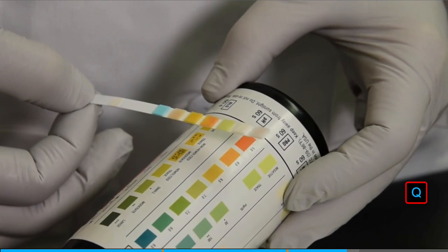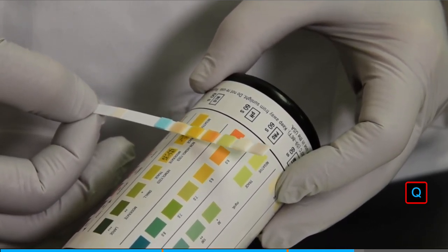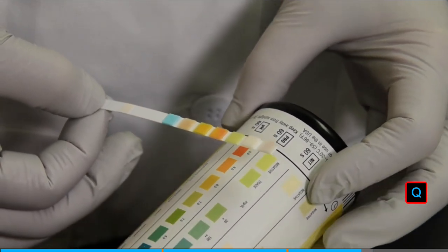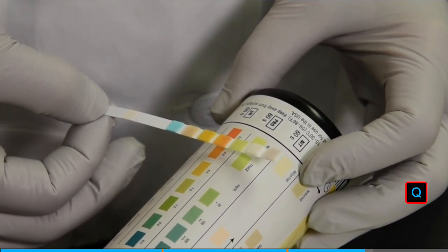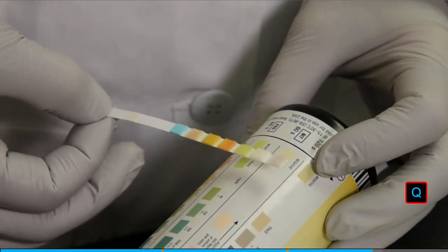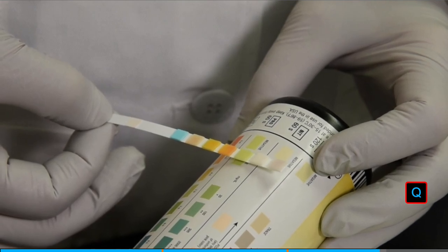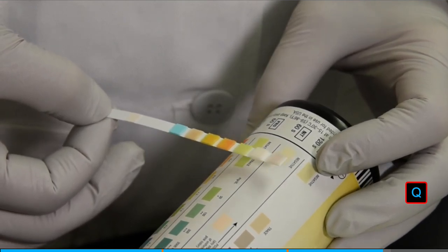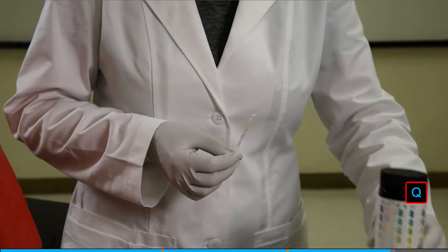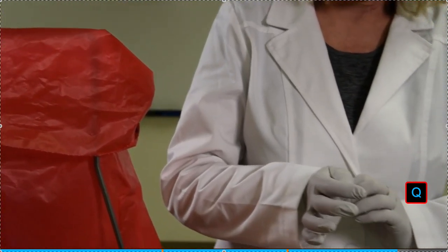The first test read is glucose, which is the colored pad that is closest to the handle end of the dipstick. For each colored pad, use the key on the container to approximate the value for each constituent listed. Continue reading from the bottom up, matching each colored pad with the key and reading at the time indicated. Record your results. Note that you may use real or artificial urine in the lab. In either case, remember to wear gloves and dispose of used materials in the biohazardous waste container.